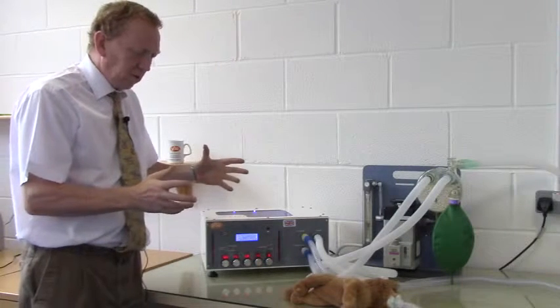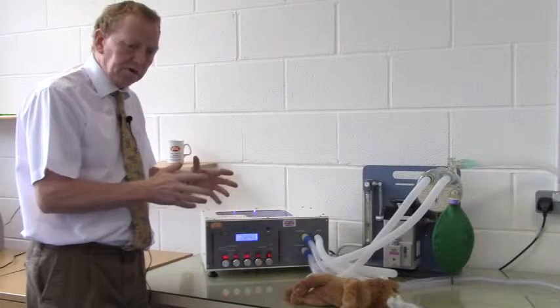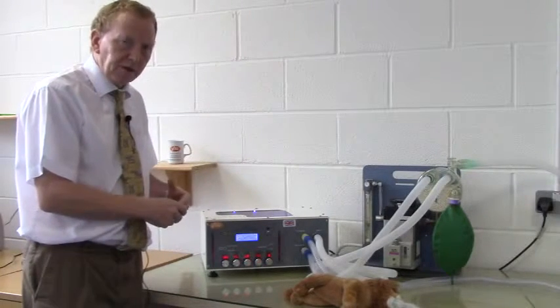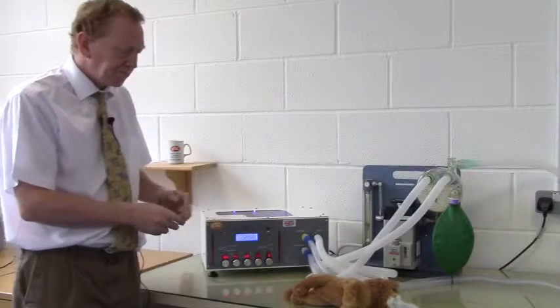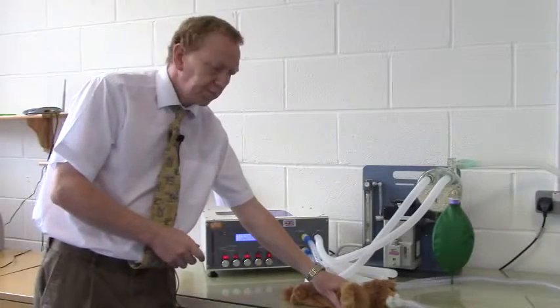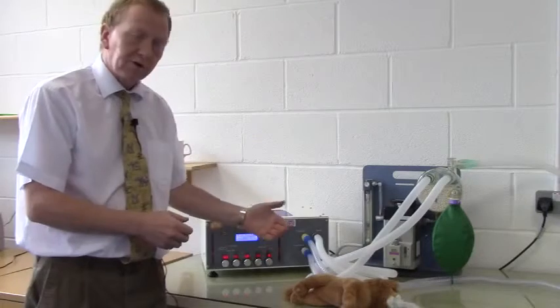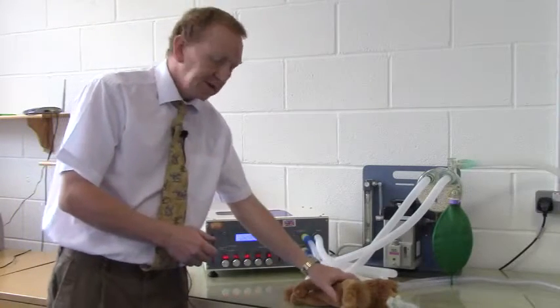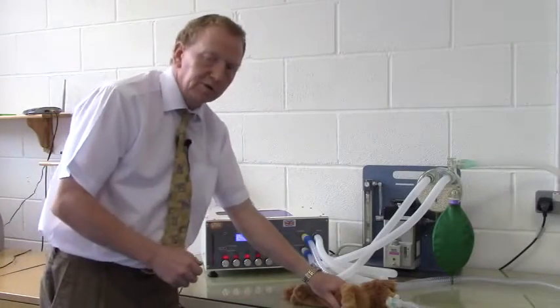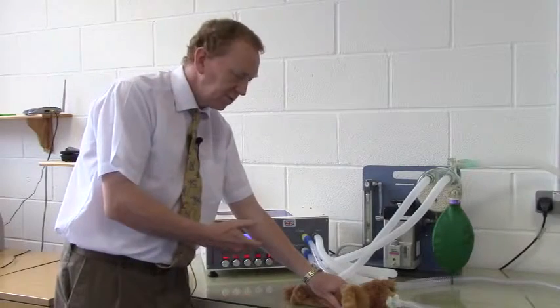The interesting thing, or the most useful feature of pressure cycling, is that as the animal gets smaller and smaller, the protection ability afforded by pressure cycling becomes more apparent. If I now occlude the chest, the pressure still did not rise above 12 because we're targeted for 12, and I just delivered a much lower volume. And in that instance, 90 mils was delivered. There's no interference to the function of the ventilator. It's behaving as it normally would.